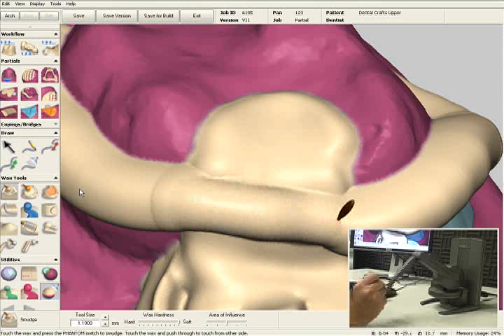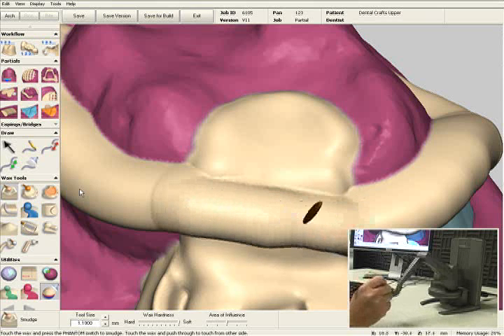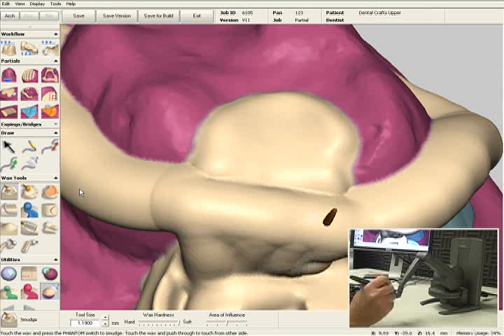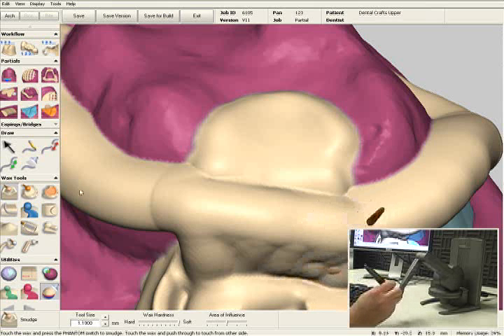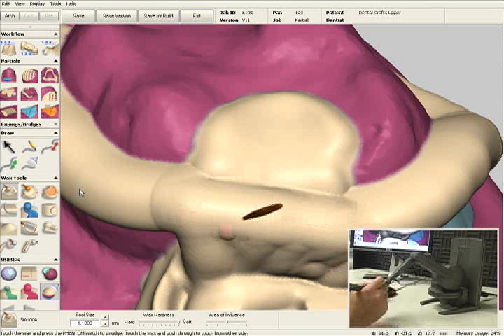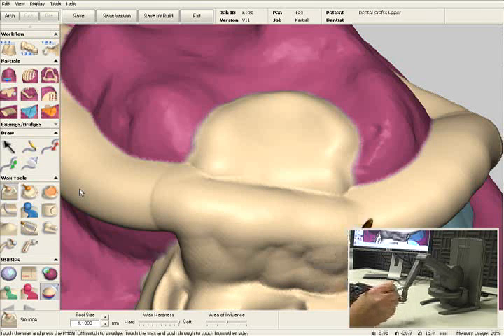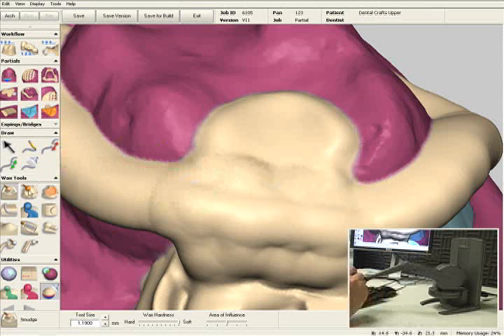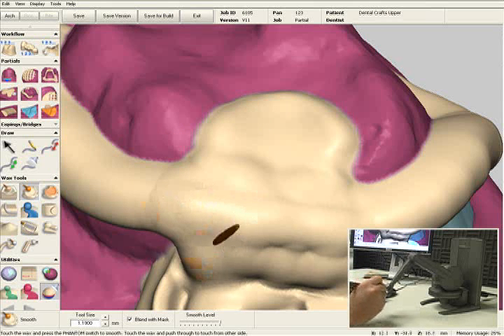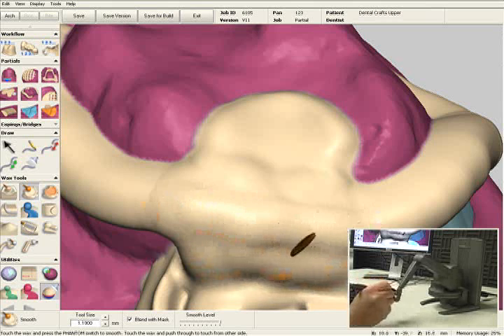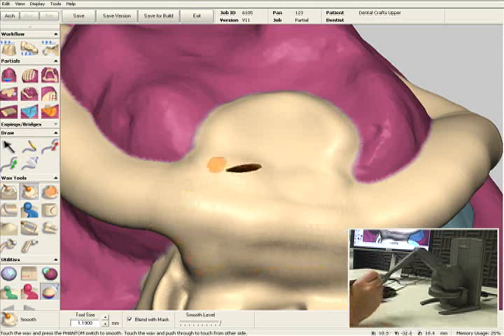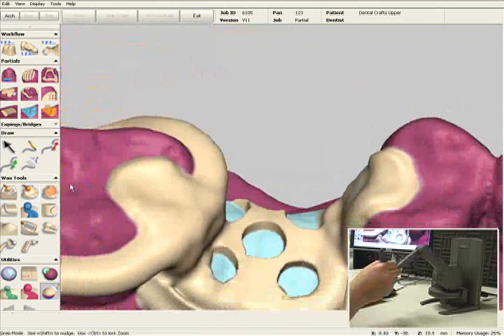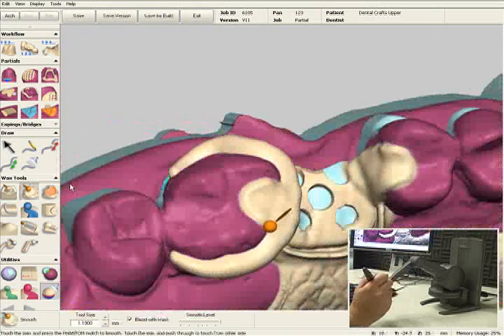As you can see, I'm adding wax with this smudge tool. I can actually feel the resistance from the wax as I'm adding it on — this really does feel like I have a wax instrument in my hand and I'm waxing onto this partial. I'm going to select the smooth tool and just blend everything in, and there's our Akers clasp.